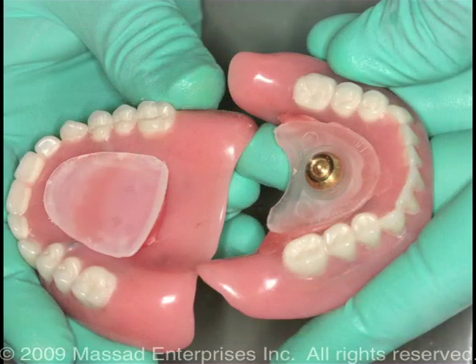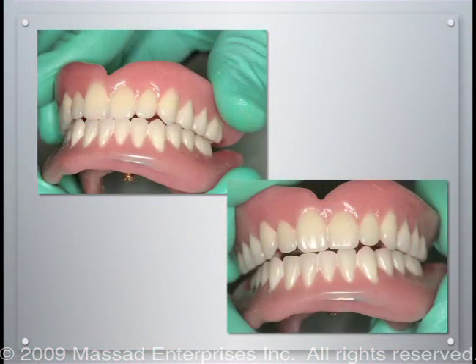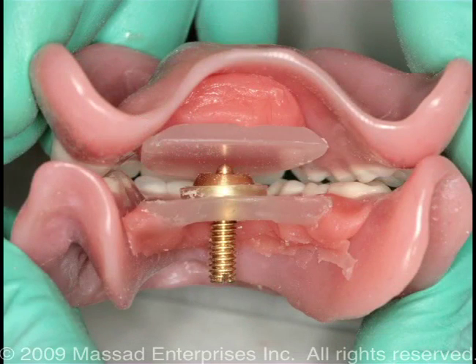This demonstrates the completion of the mounting of the striking plate and the pen receiver on a denture for purposes of post-operative equilibration. It is necessary to assure that the mounting of the jaw recorder will allow the denture to close completely. We need to analyze this both from a lingual and a lateral position to be assured that the pen will not keep the dentures from completely seating.